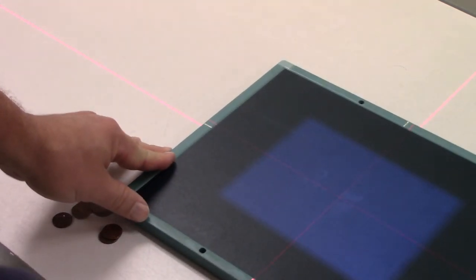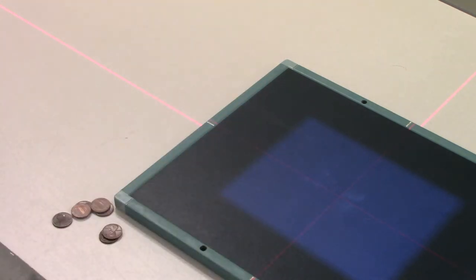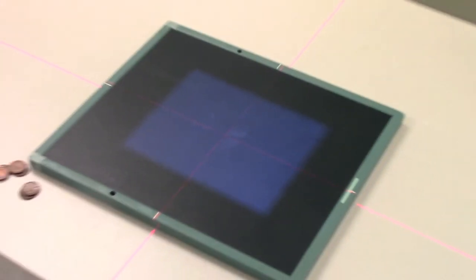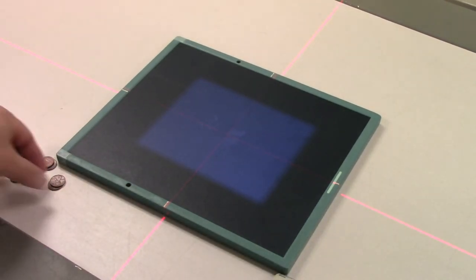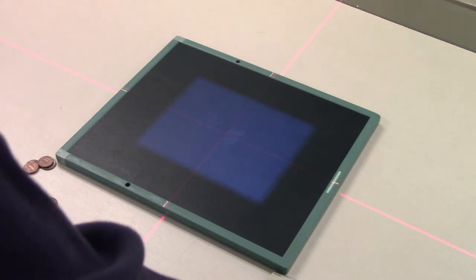First things first though, what we're going to do is collimate down to, I don't know, like an eight by six rectangle, something along those lines. This test is referred to as the nine penny test, and the reason it's called the nine penny test is because it requires the use of nine pennies. You could get by with eight, but I usually use nine.